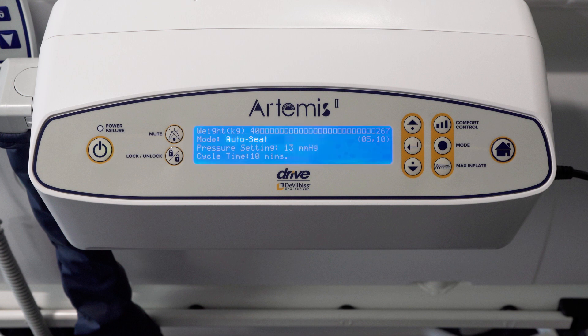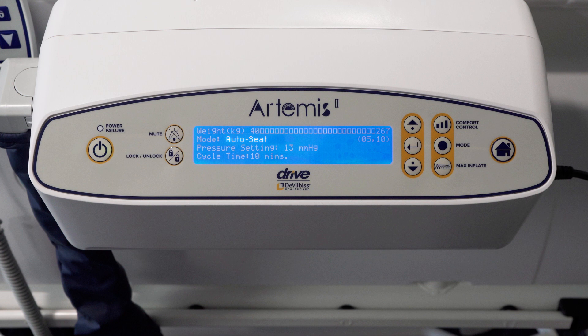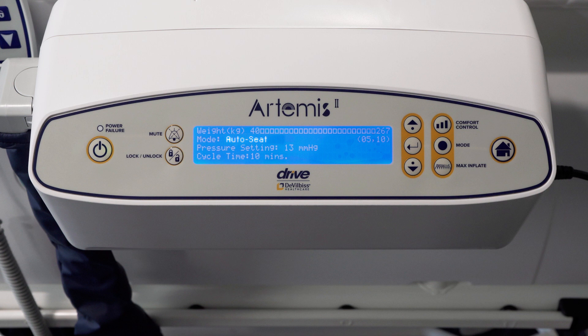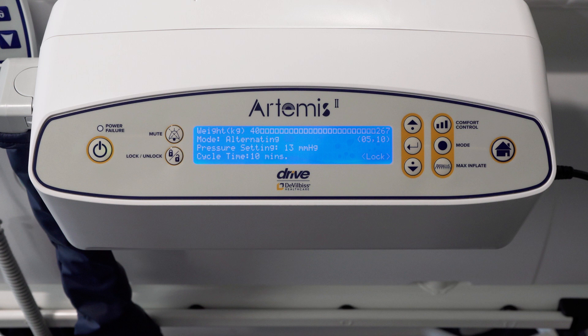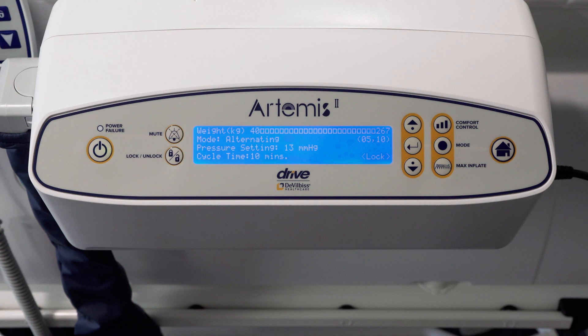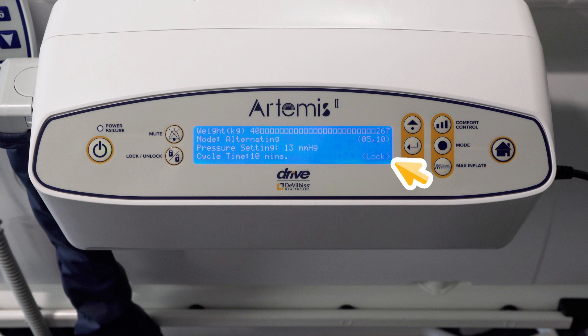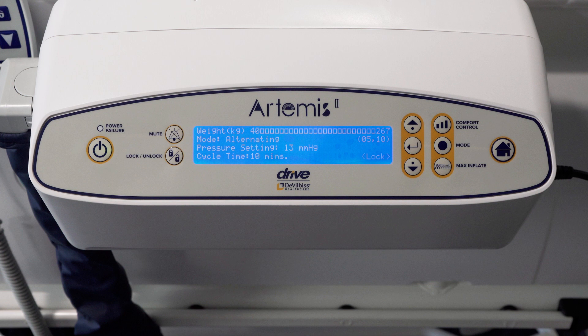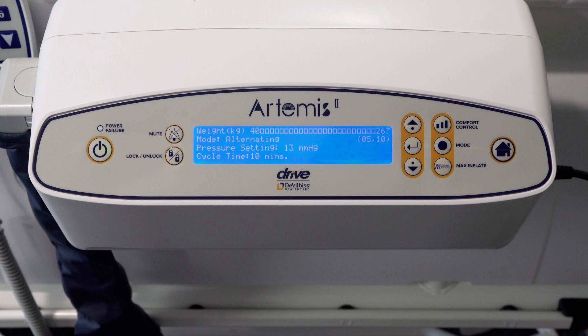If a patient's backrest is more than 25 degrees head of bed angle, the auto seat will be activated in order to support the patient's sacral area. If the patient feels they require extra support, increase the comfort setting. The control unit locks out all functionality after two minutes of inactivity, indicated by the lock in the right corner of the home screen. Press the lock button to unlock the pump.